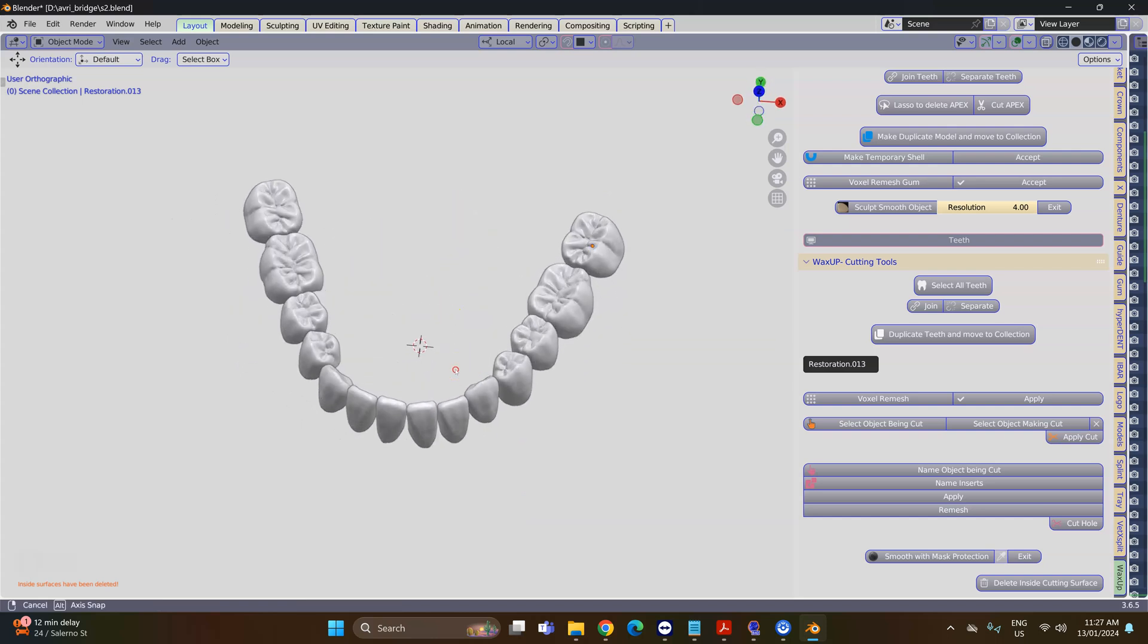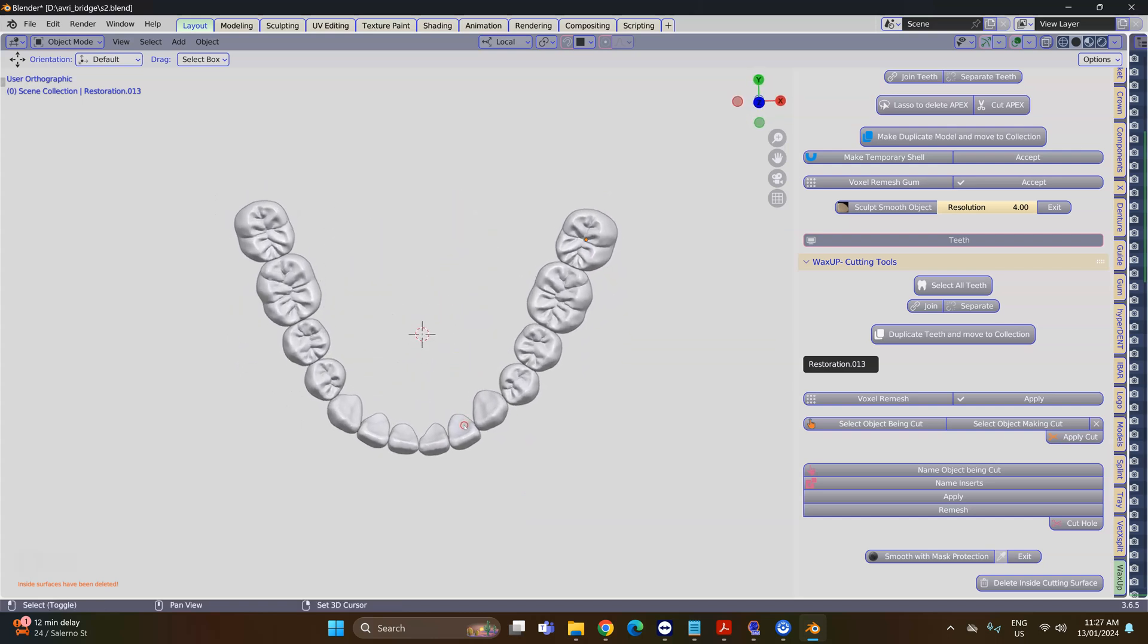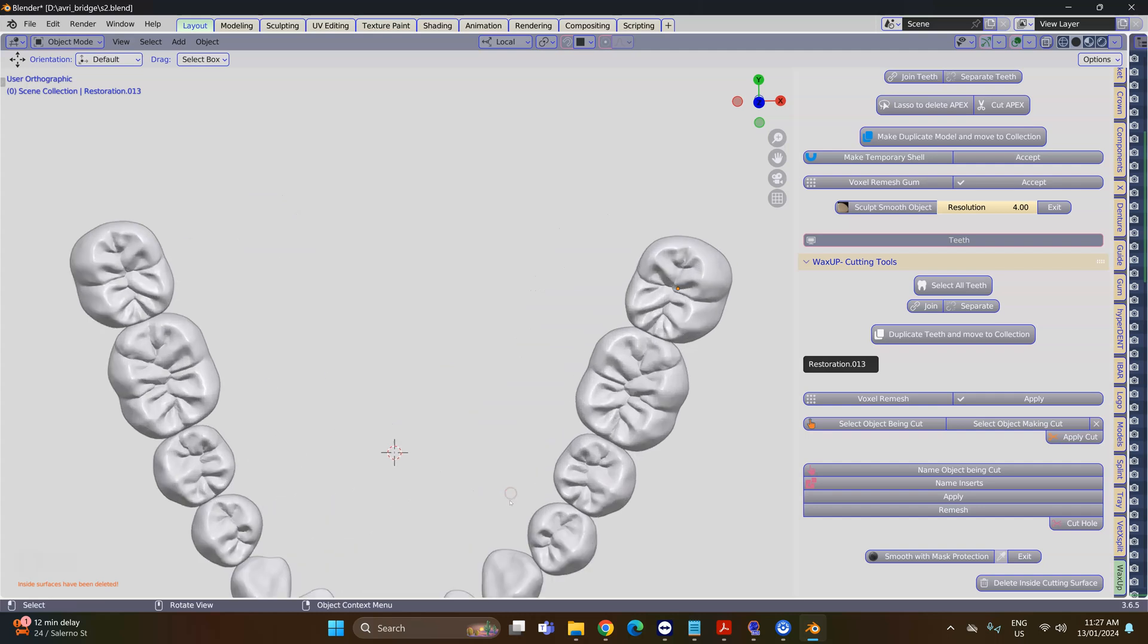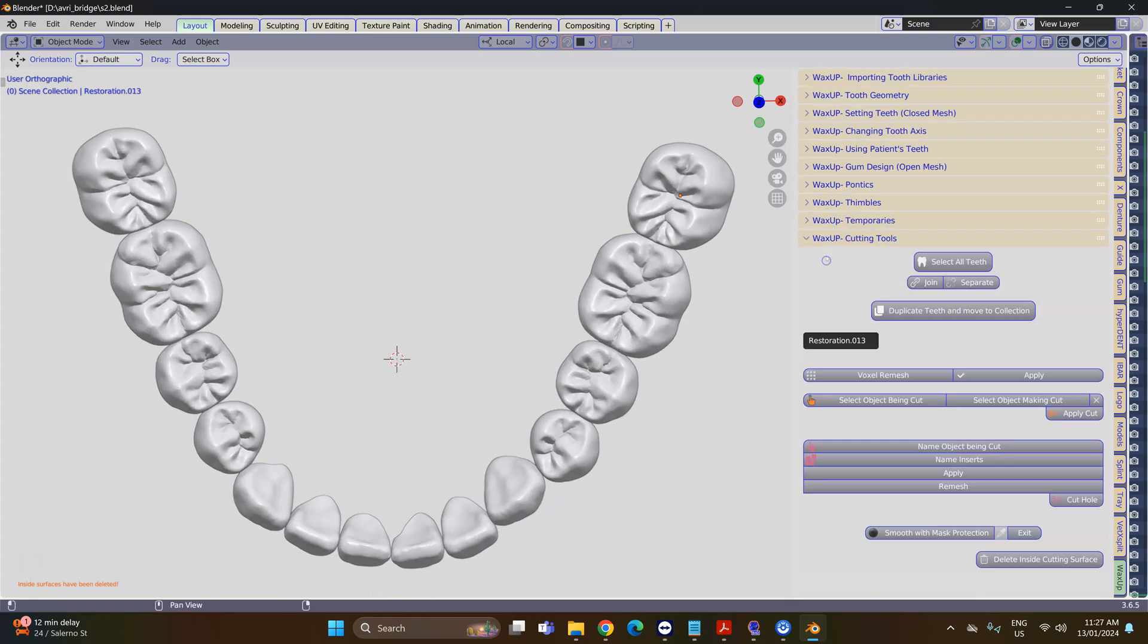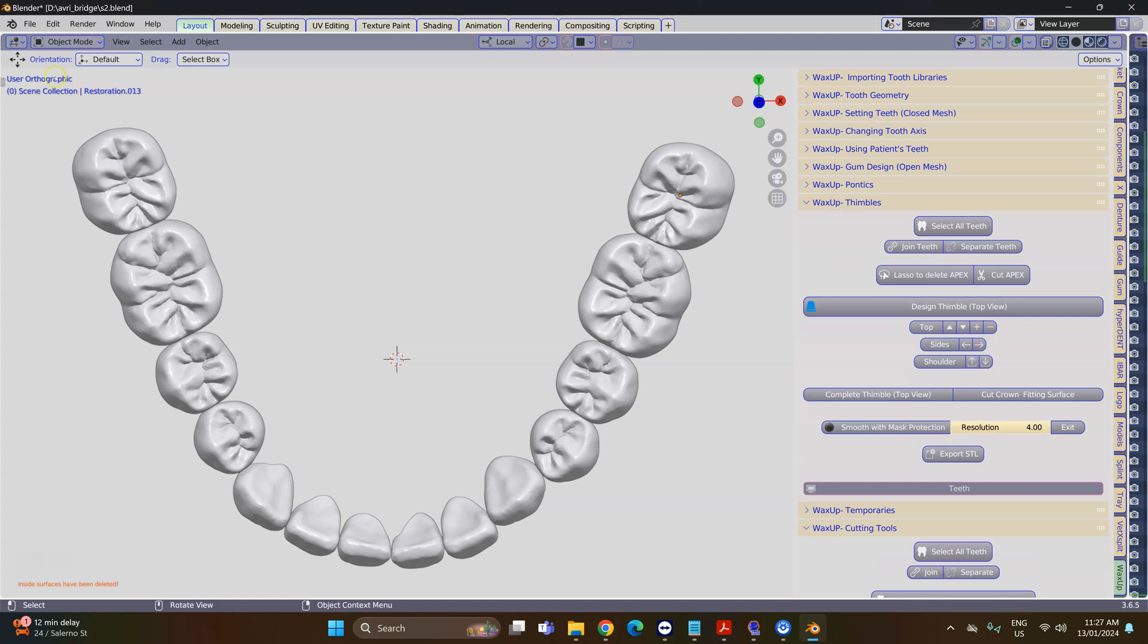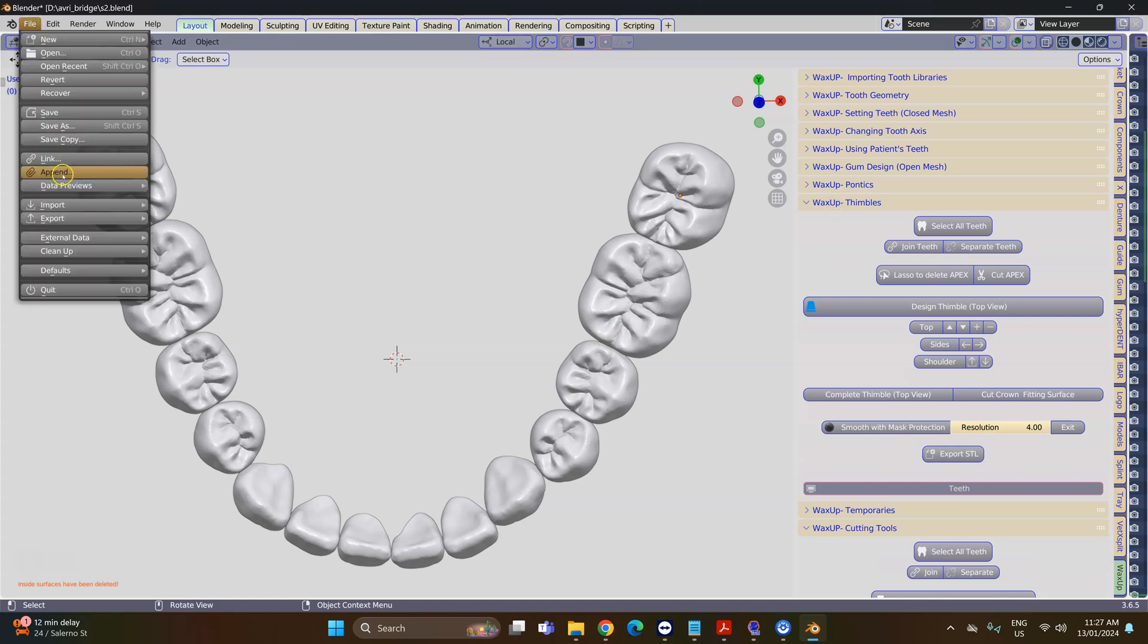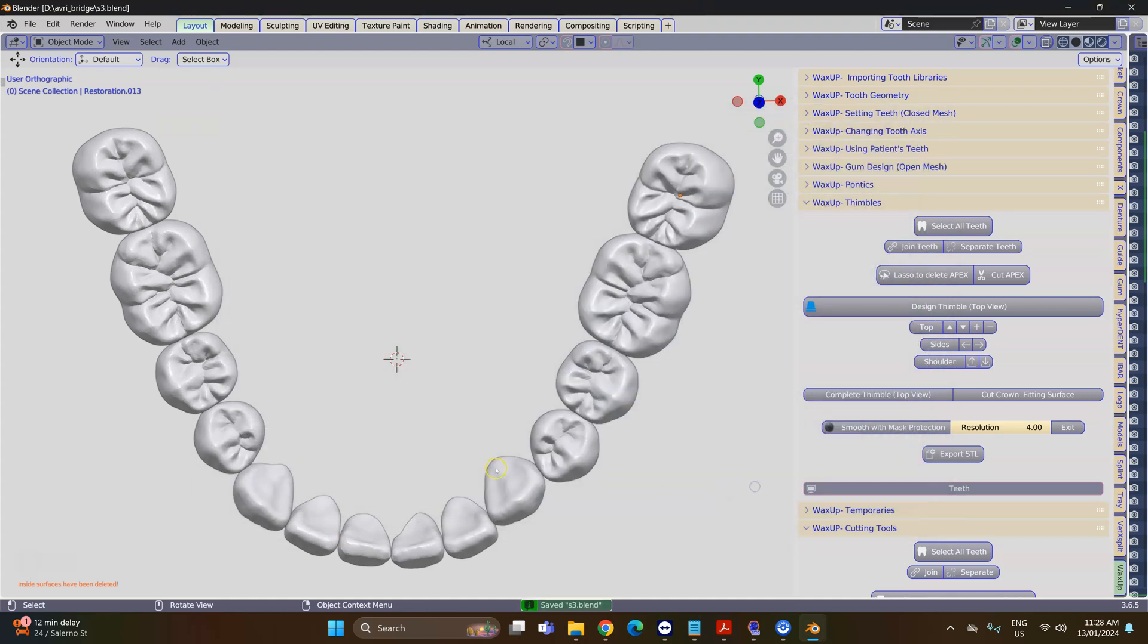We have a whole row of hollow teeth. This is the foundation for us to make thimbles. I'm going to look at this from the top view, go to the Thimble menu, and we're going to always save our files. Make sure you save your files.